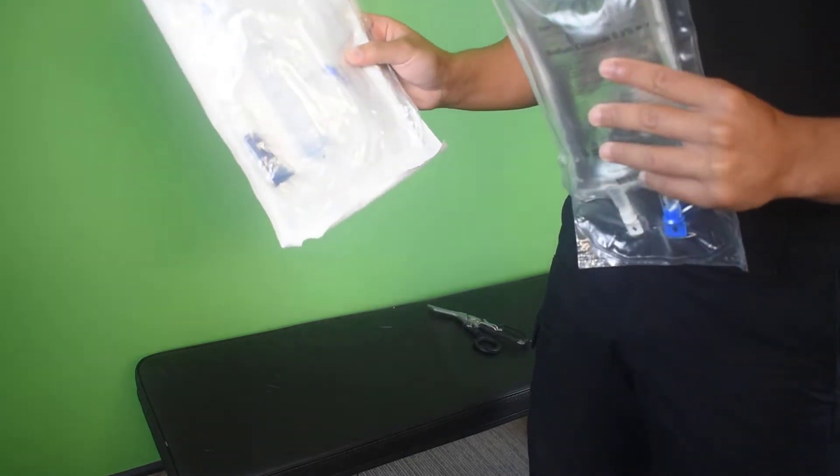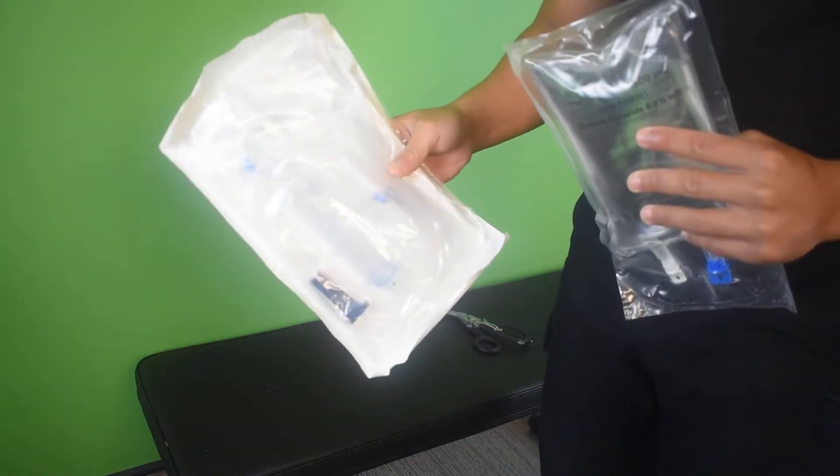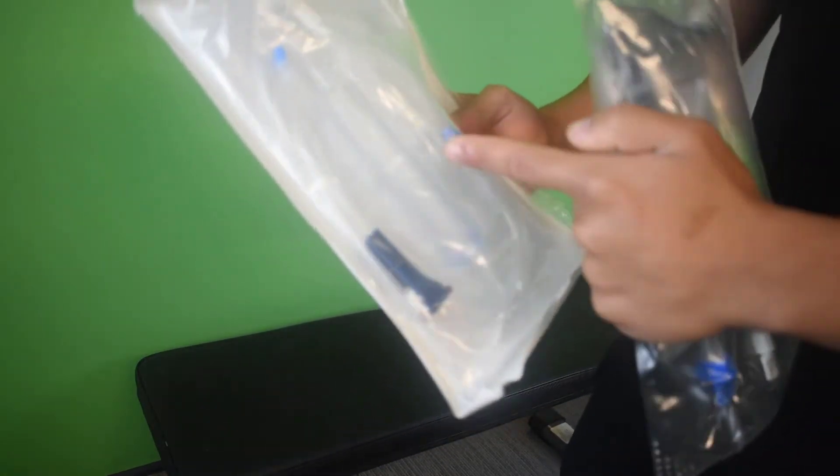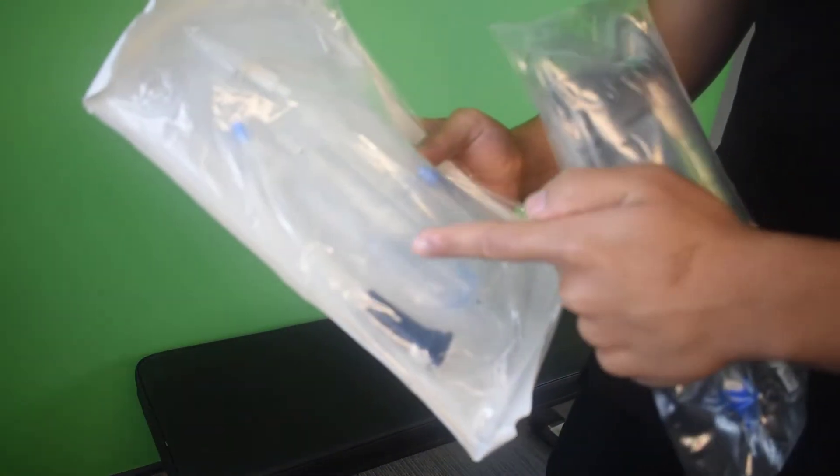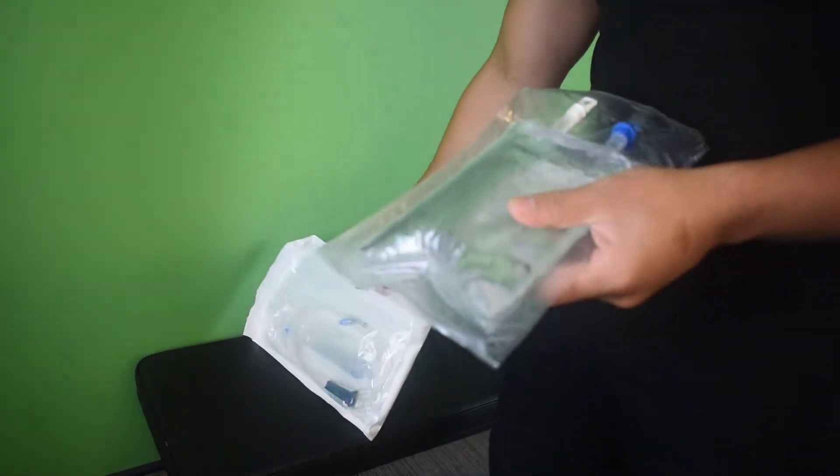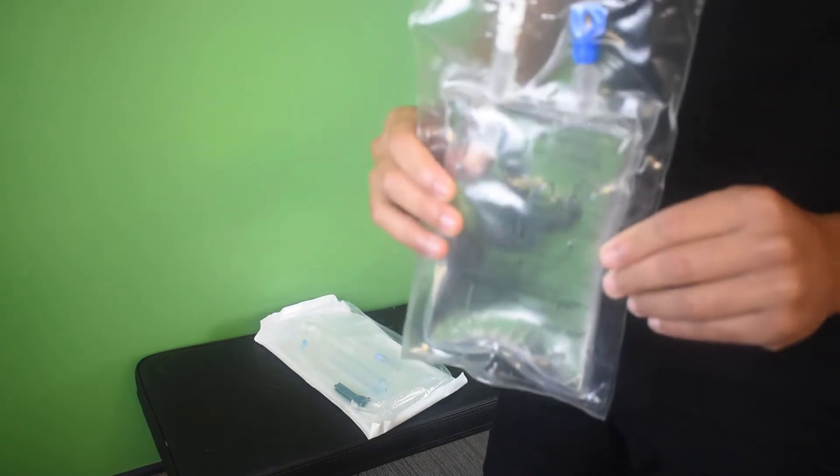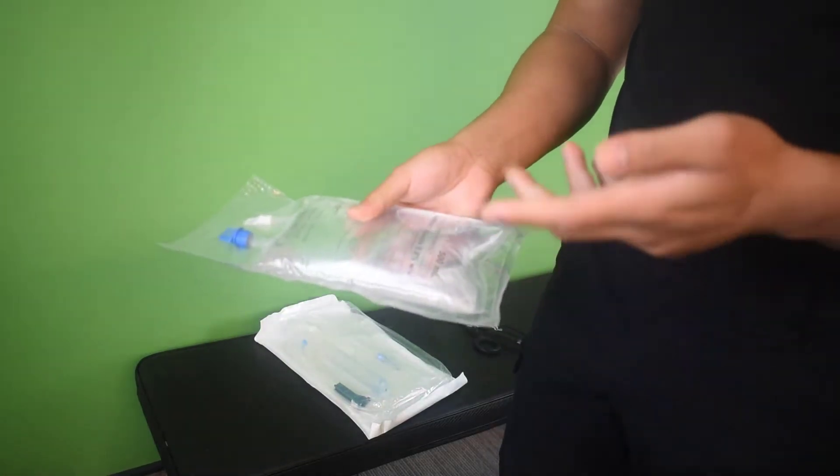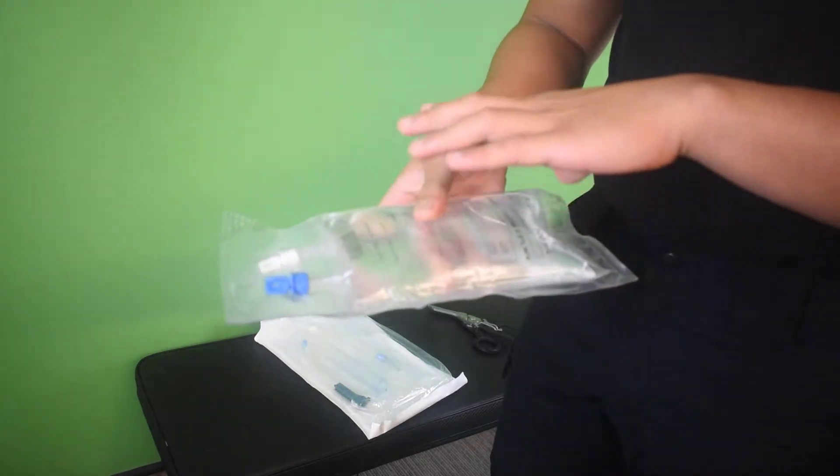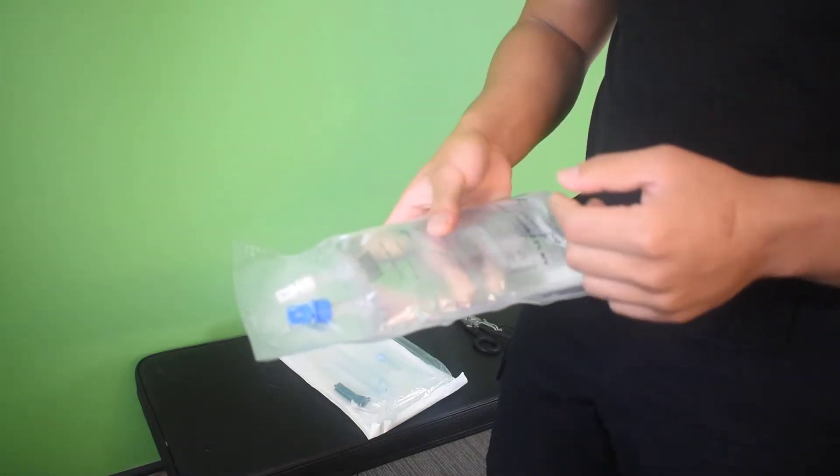These are your two main things you will use in priming a set. You have your pump set, which includes your drip chamber and your pump chamber and also your Luer lock, and you also have the fluids that you'll be giving to the patient. Now this is something that I just bought online, but in the ambulance service they have something very different but still works the same way.